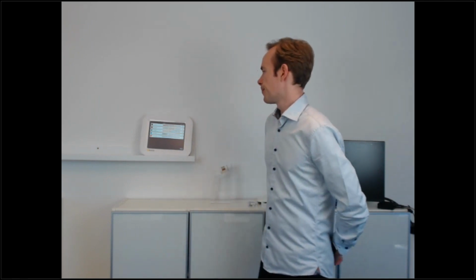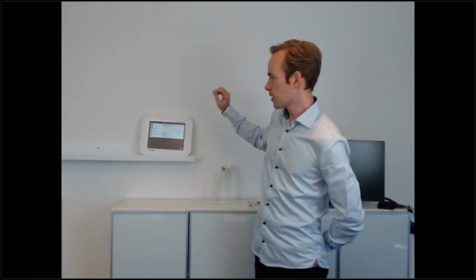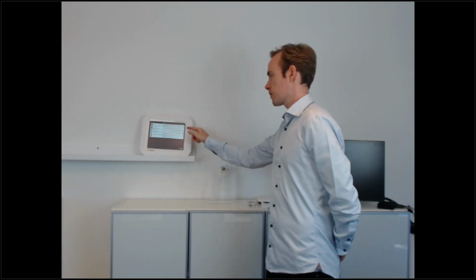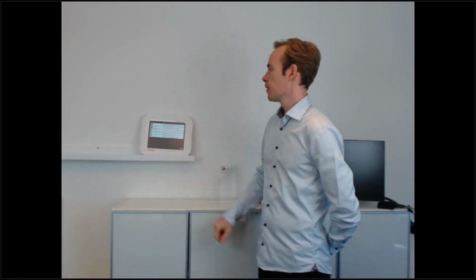Thank you. Is there any easy way to see the accumulated dose without connecting the dosimeter to the computer? Depends on what system you have. With the standalone version, you can click an option to show an accumulated dose right on the front page. You can also reset it with a button there. With the OSD system, the easiest way would be to connect to the web interface and download the data.